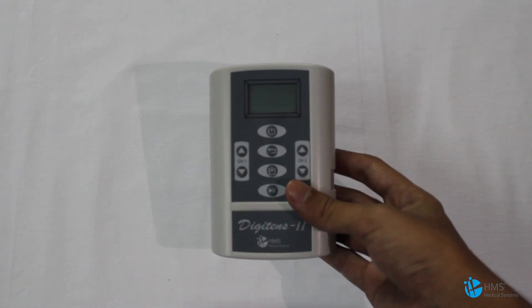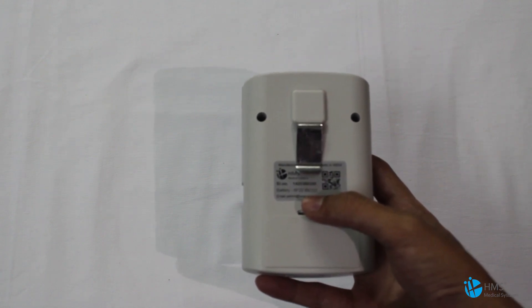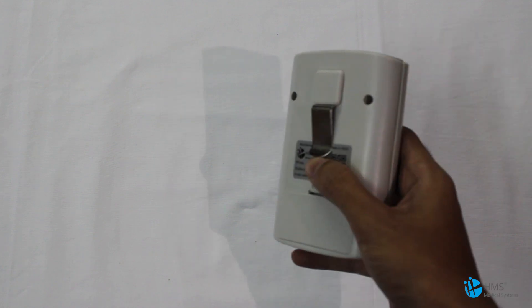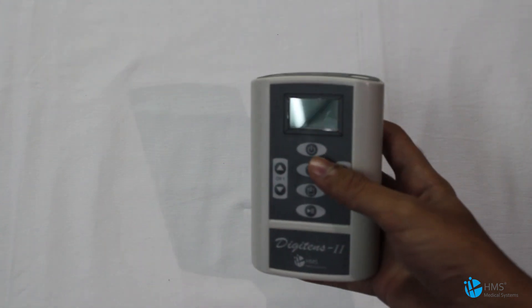Being a pocket model, the main purpose is to use it wherever you go while traveling or otherwise. We have also provided battery operation, which is very easy to insert — just like how you insert a battery into your TV remote. We also have a convenient clip to fix it onto your belt or anywhere else on your body.